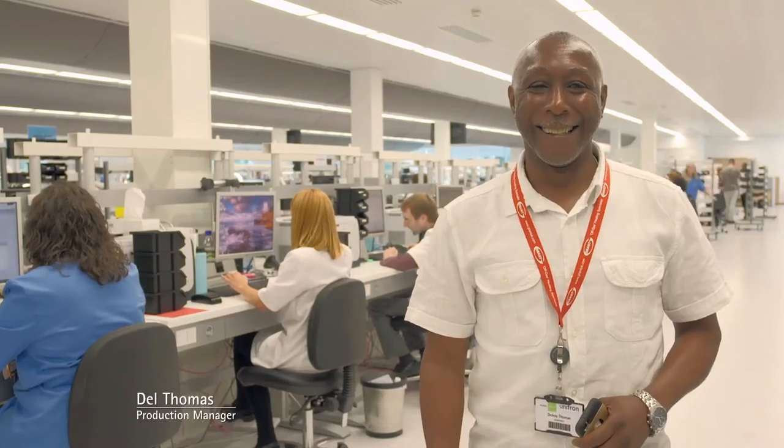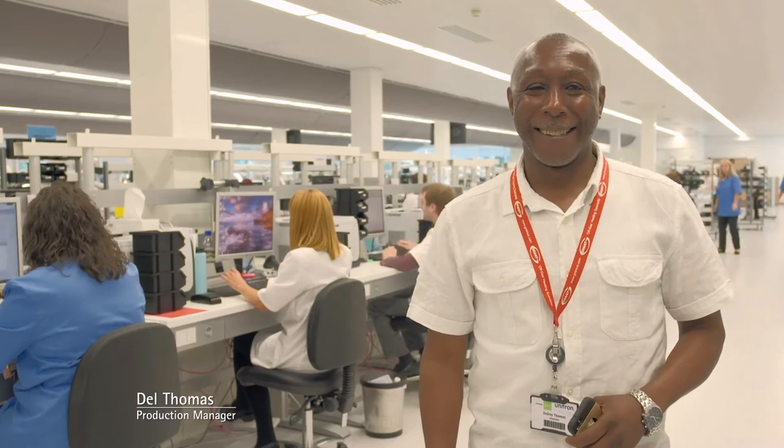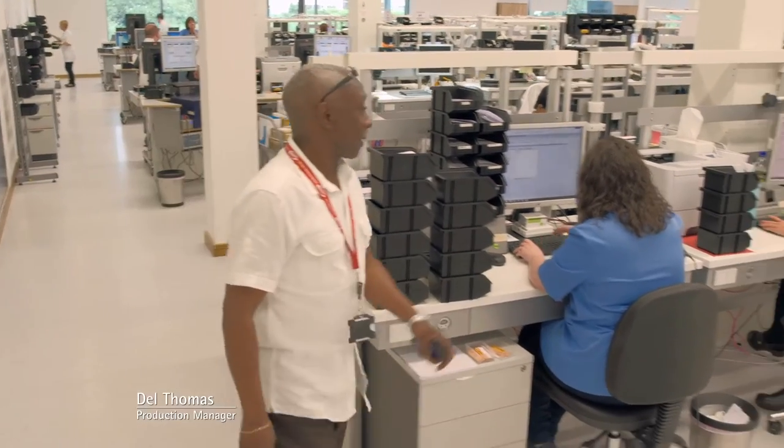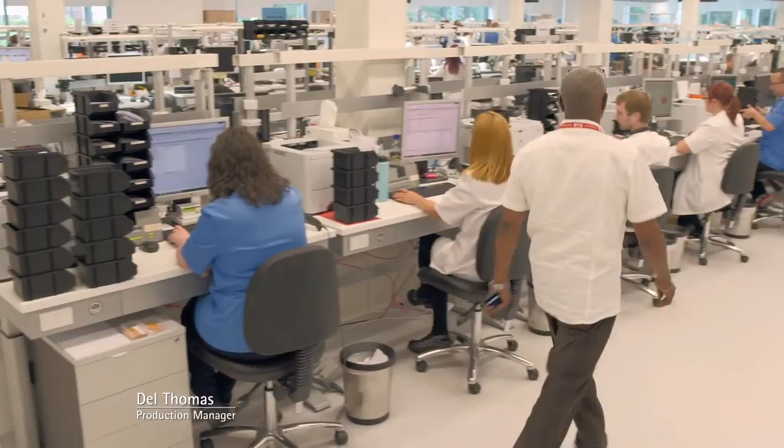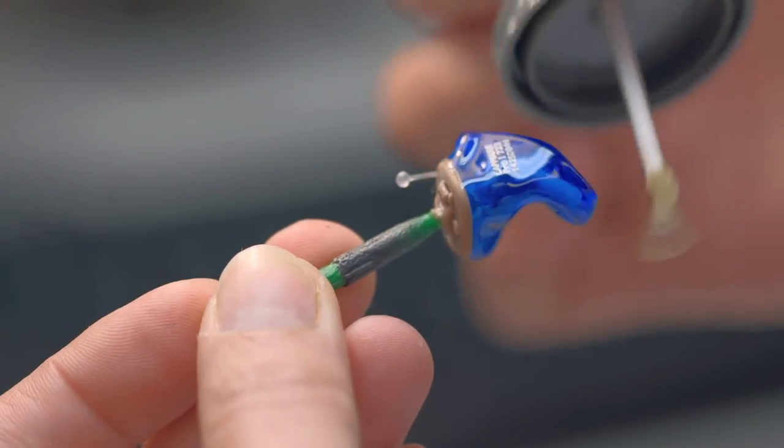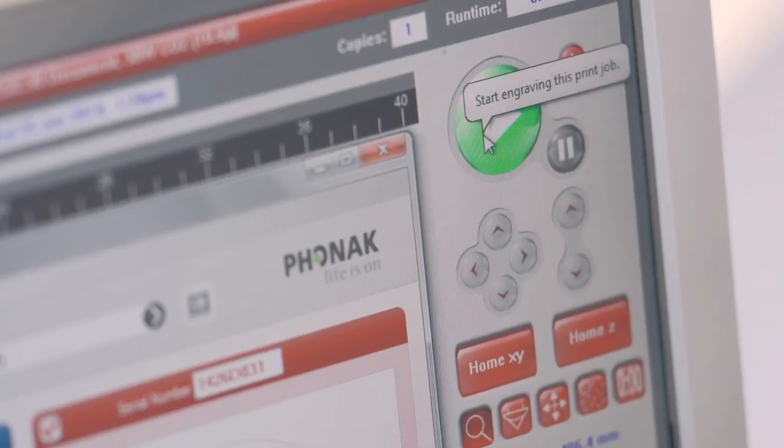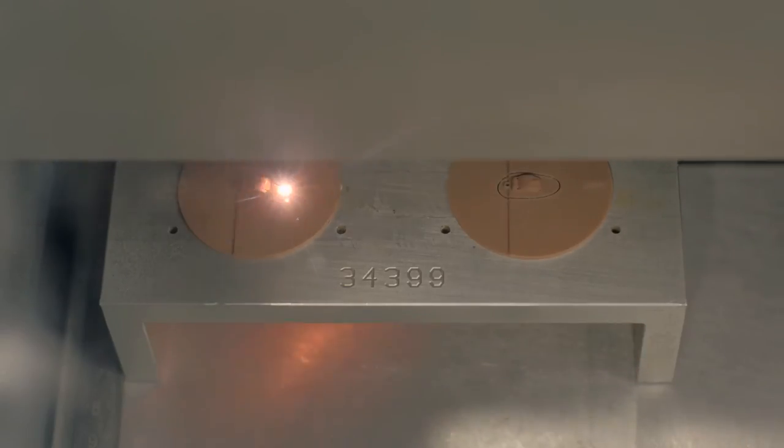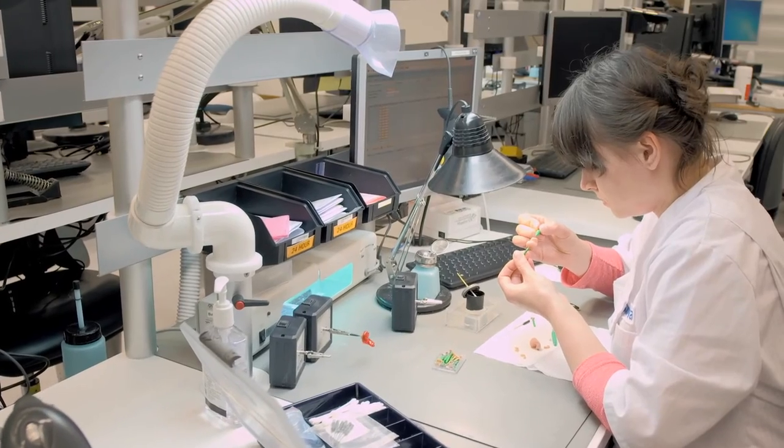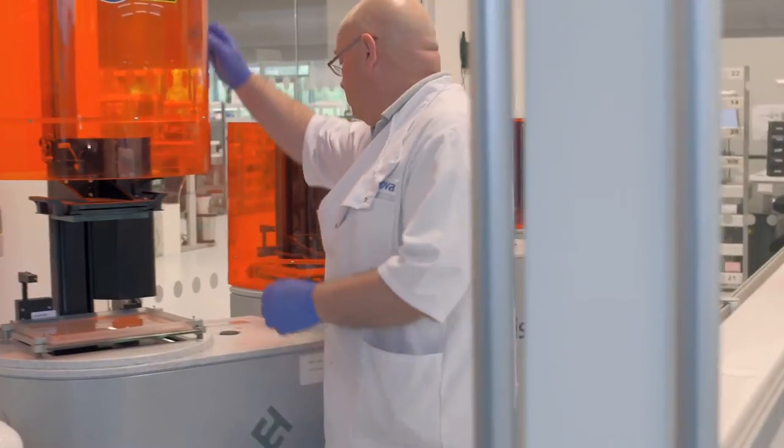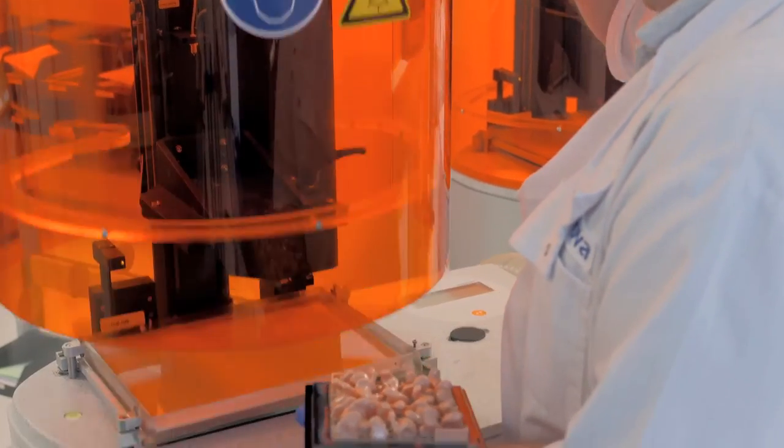My name is Delroy Thomas. Most people just call me Del for short. My role as production manager started in 1987. The strength of Phonak is within our software, the technology and the training that we provide our technicians. The 3D printing is all about accuracy. To the hearing aid industry as a whole, speed is of essence. 3D printing reduces the time by about 70% versus the manual process.